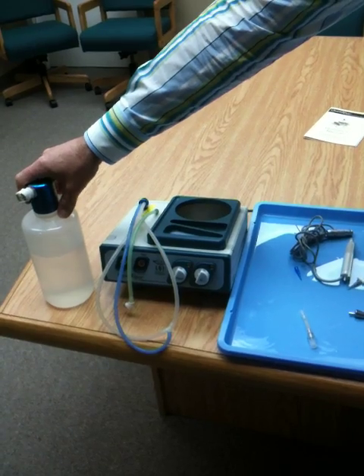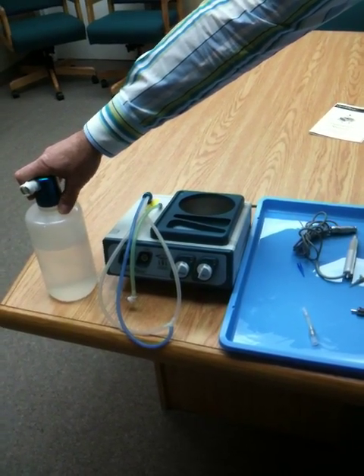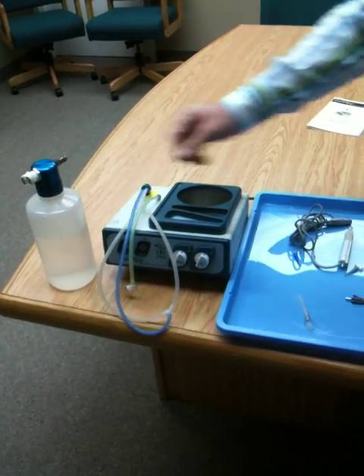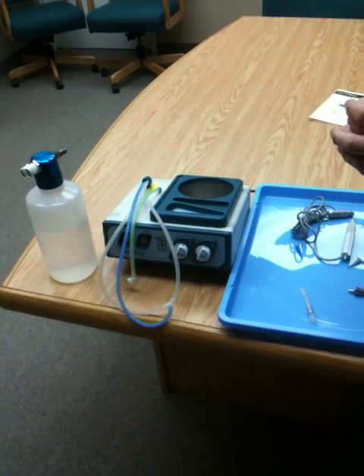So you will need to replace these parts eventually. For the bottle, make sure you're not sterilizing it in a pouch, or the pressure inside the pouch will cause the bottle to shrink. Always allow your bottle to cool down after sterilizing; otherwise, when you pressurize the unit, your bottle will bubble and expand.